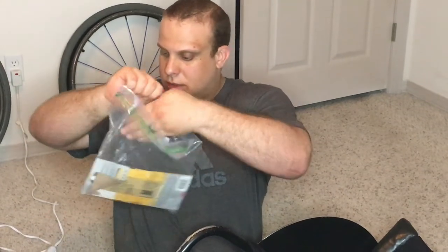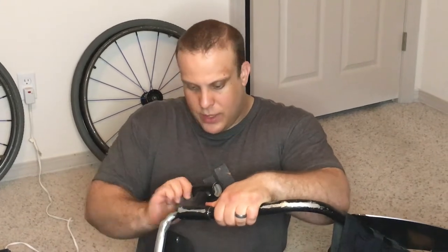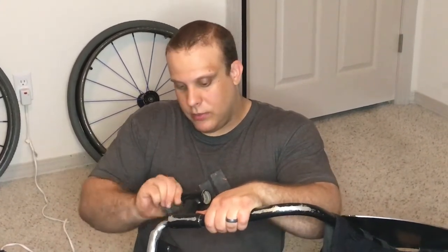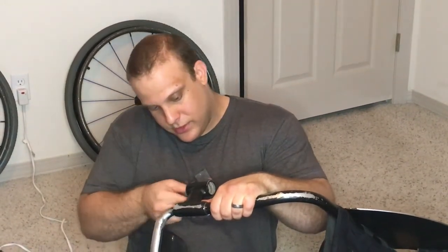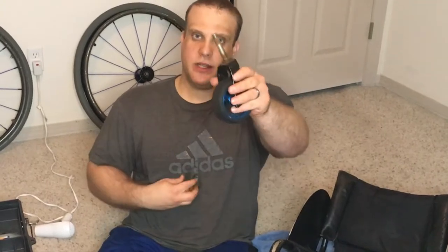What I'll do just to make sure all the gunk is gone is take a little bit of steel wool. This isn't a very aggressive grit, but I'll just rub it in there because there is salt and dirt in there from the season. That way when you put the new ones in, they go in a little bit smoother, and if you ever have to get them out it hopefully prevents some of what we just went through. I'm also going to take the caster fork stem — you can see it's pretty rusty and got some corrosion on it — and use the steel wool to scrape as much of that off as possible to keep things flowing smoothly and prevent the chair from seizing up.